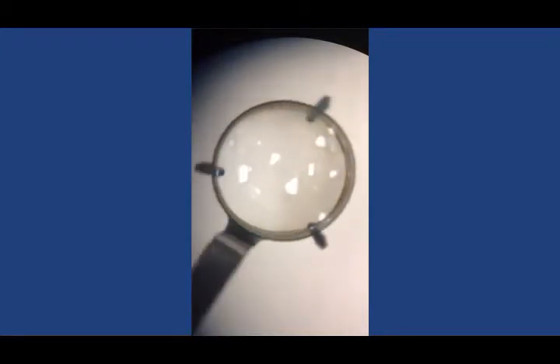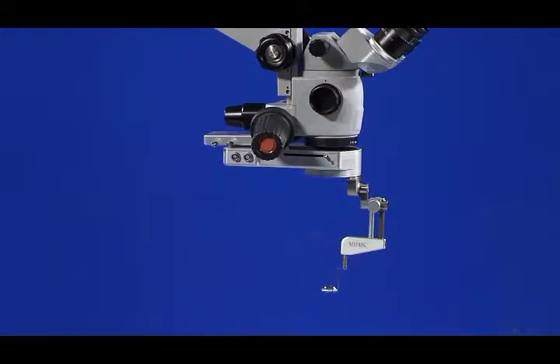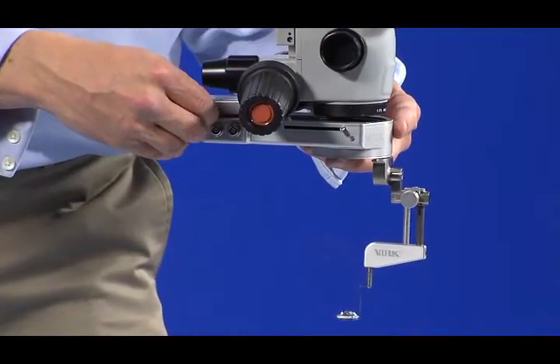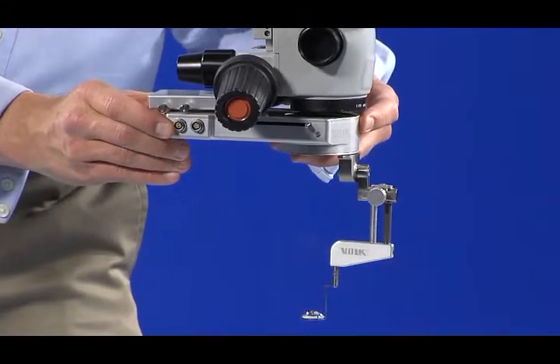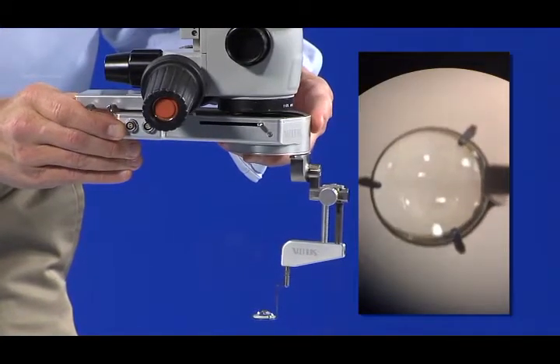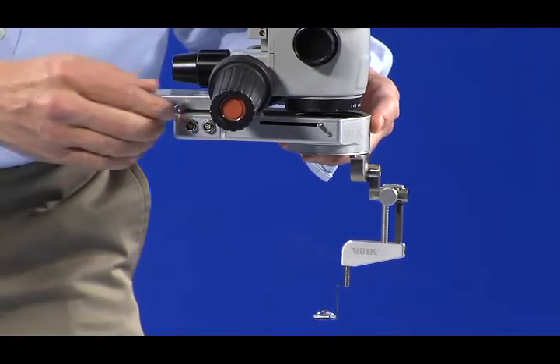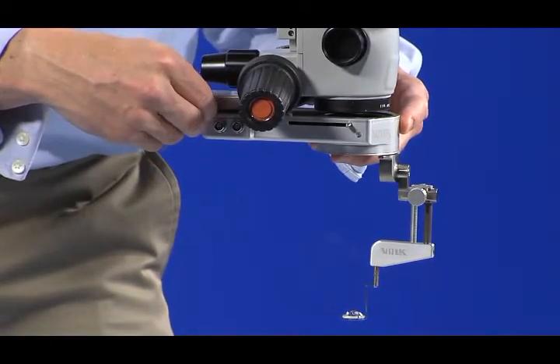View the lens through the scope oculars and determine the front-to-back position of the lens within the scope's field of view before making any adjustments. Rotate the LPU to the 3, 6, 9, and 12 o'clock positions and view the actual location of the lens relative to front-to-back positioning. If needed, loosen the adapter plate thumbscrew slightly to allow the CLA to move. Adjust the front-to-back position of the CLA by sliding the CLA in the dovetail until the lens appears centered. Secure the CLA position by tightening the thumbscrews in the adapter plate.